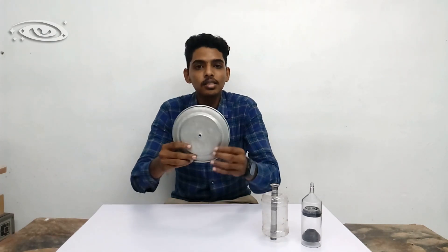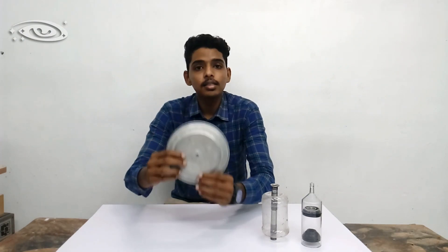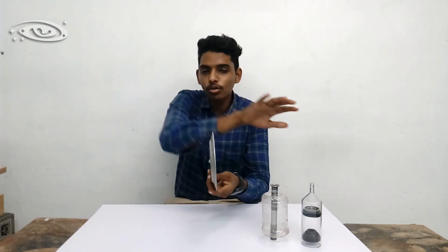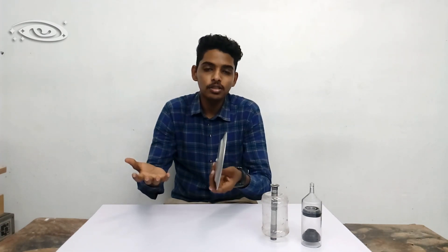The reason for this circular disc is to dissipate heat quickly from the target. If the target is small, heat does not dissipate quickly, the target will get pitting soon, and X-ray intensity, energy, and tube life are all reduced. This disc is made large to dissipate heat quickly, but only 50 percent of heat is dissipated from the anode itself — the other 50 percent is dissipated through oil filled around the X-ray tube, which absorbs heat and increases tube life.